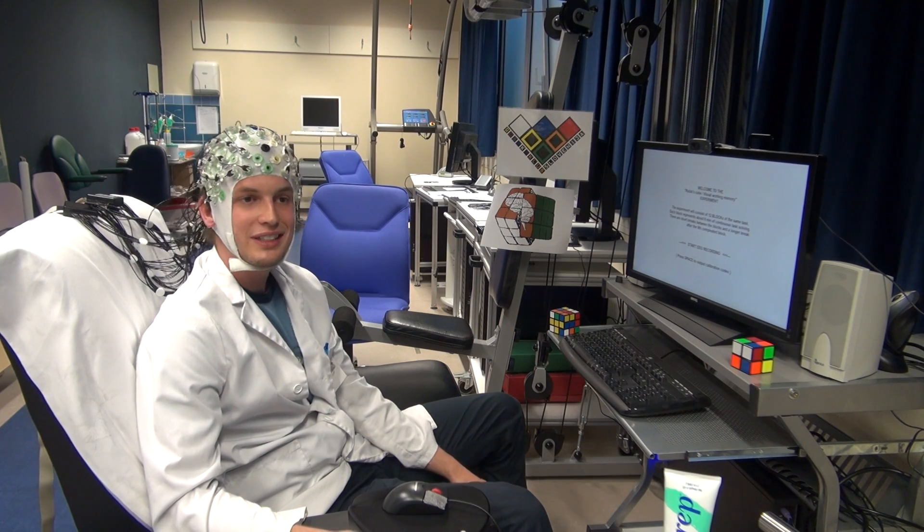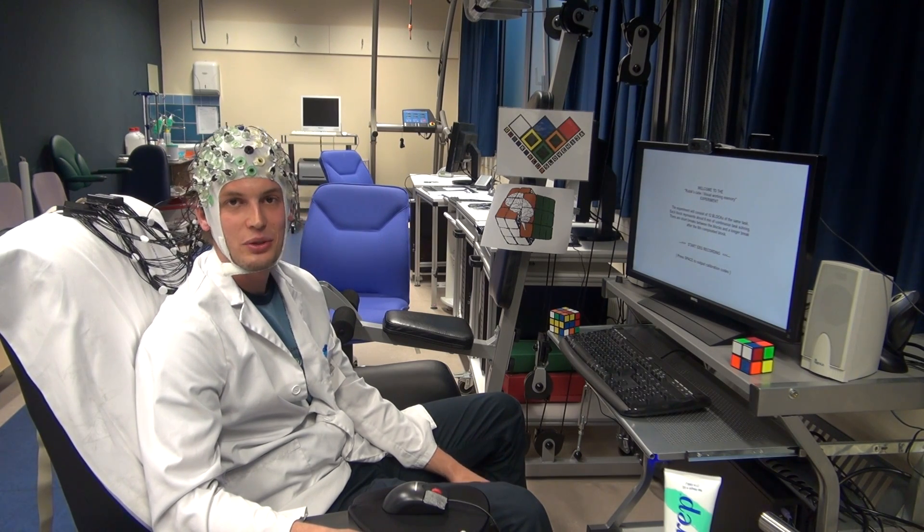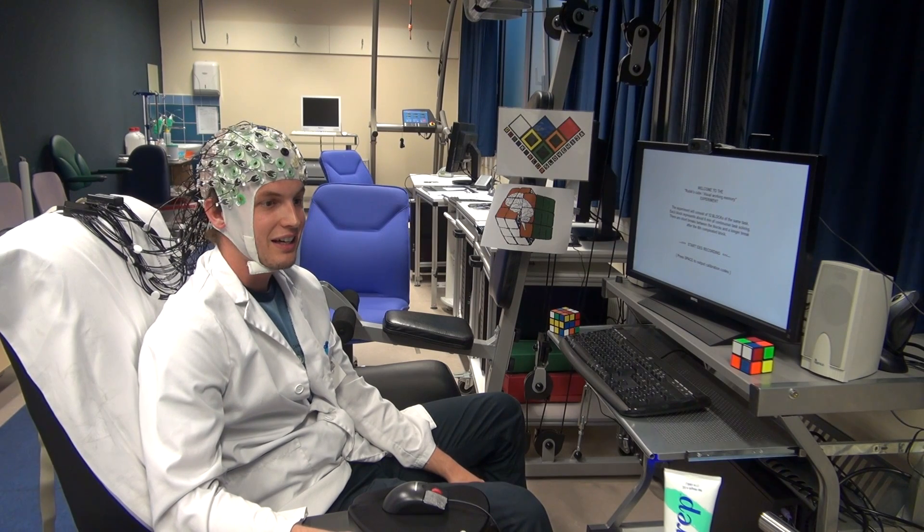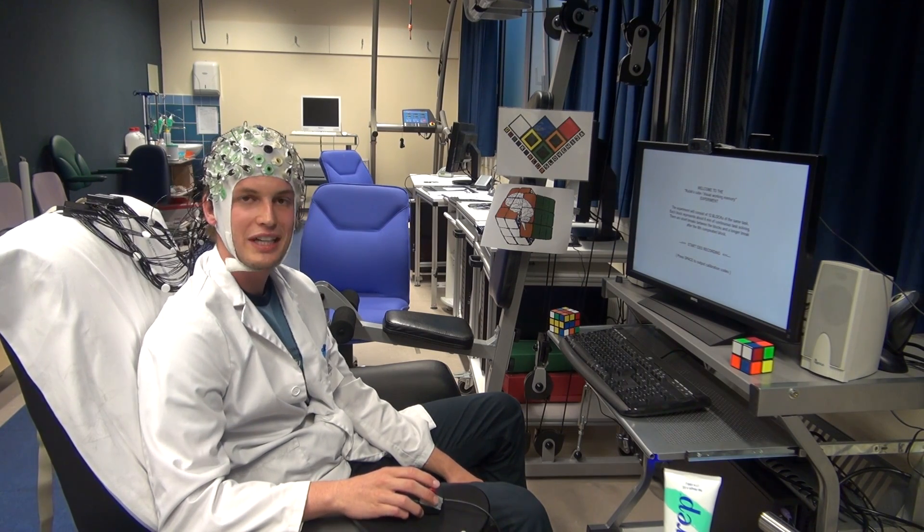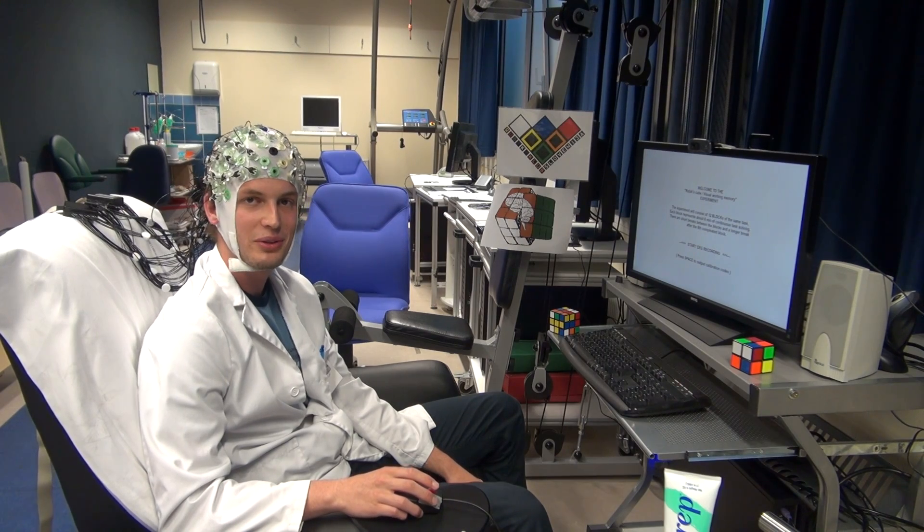So we thought that it would be very interesting to test Rubik's Cube solvers and so you are invited to come here and have a good time doing the Rubik's Cube and recording EEG.